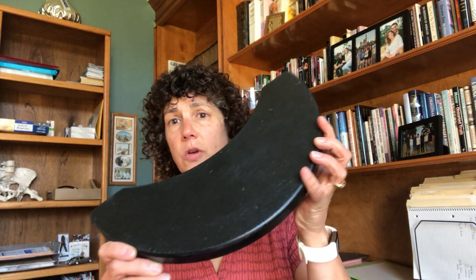This is often placed within a pad that I might activate by turning my head — that's often part of the head array — but we can also place these within a tray. This particular tray is from Stealth Products; it's called their Eclipse Tray and this one is hollow. So I can place the switches within this, mount this to a swing-away assembly and it can just flip up out of the way when not in use, or I can place it in a more traditional full-size tray as well. The switch is now within this. The top of the tray doesn't activate it because it's not conductive — as long as it's made of a non-conductive material like plastic — and the client now has to simply slide their hand over that location. Whereas if I had a mechanical switch on top, I have to come up and over that switch surface, which is hard for a lot of the clients we work with, particularly people with abnormal muscle tone.